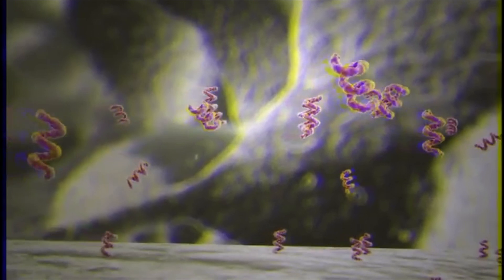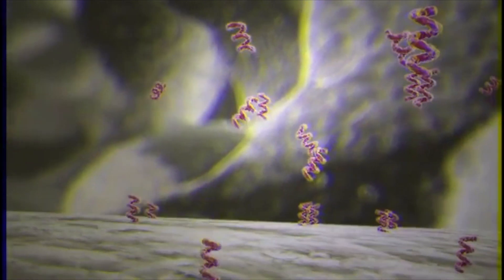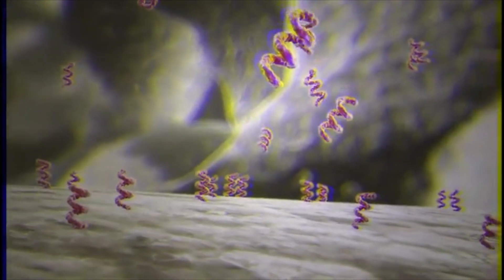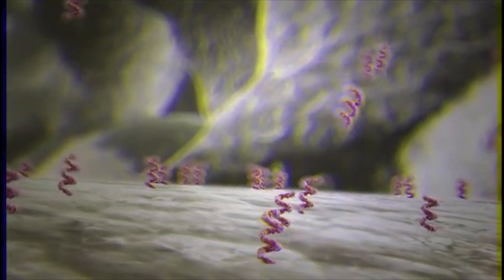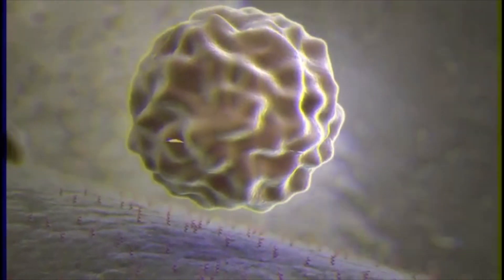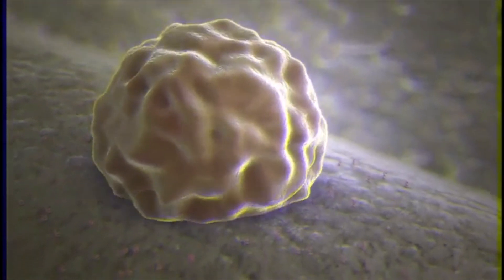The combination of scaffold topography, 3D microstructure, and optimized 0.8 weight percentage silicate substitution results in the surface layer promoting the adsorption of circulating proteins. This unique physiochemistry encourages the adhesion of mesenchymal stem cells and the subsequent differentiation into osteoblasts.